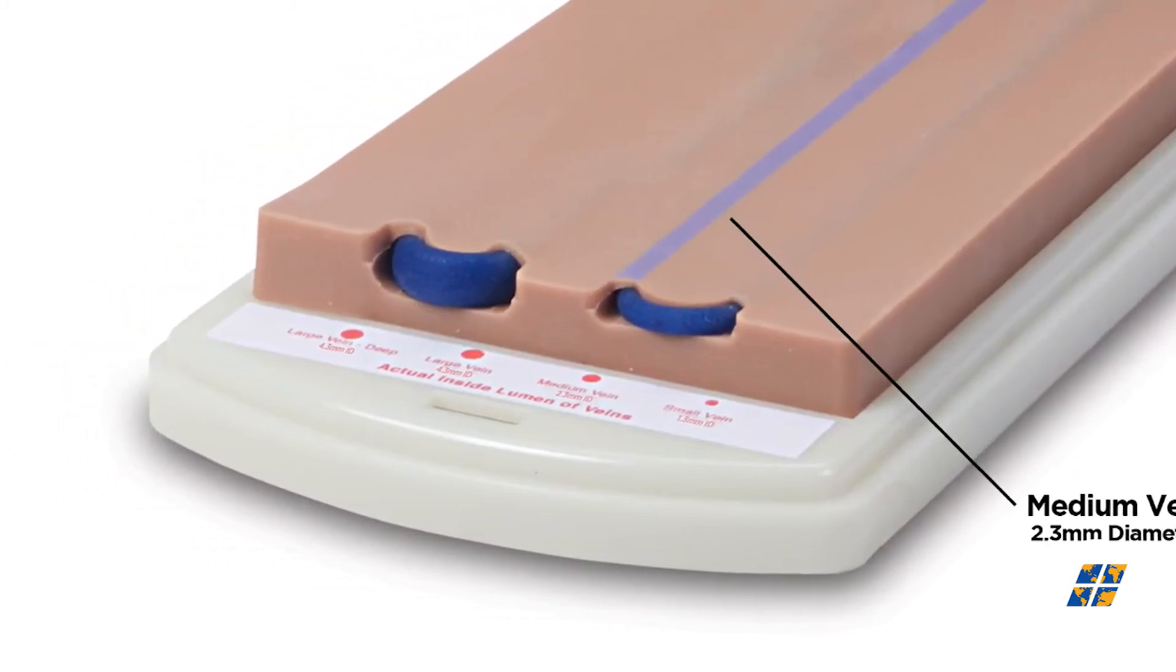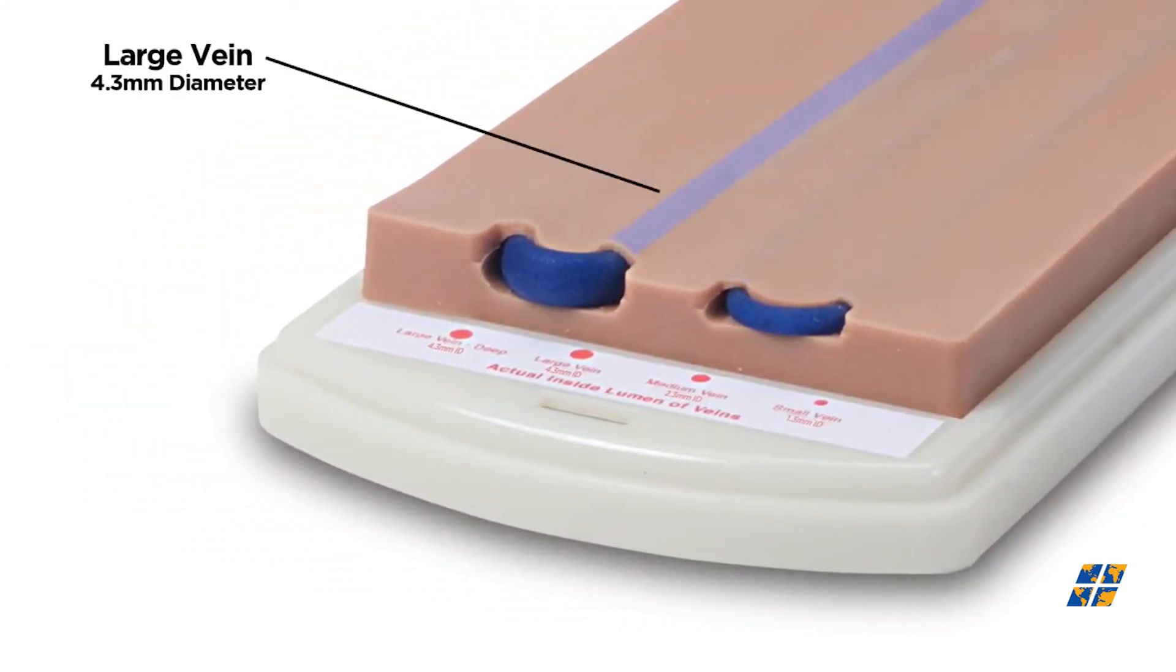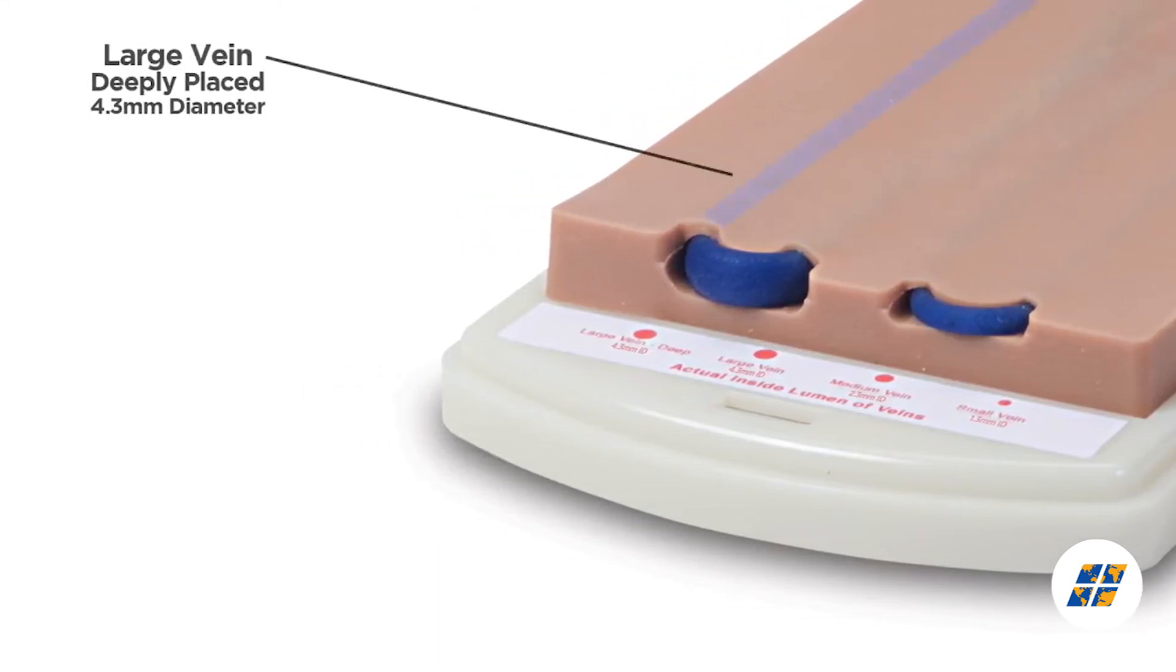The 2365 Advanced Venopuncture Training Aid was specifically designed to make accessing more challenging, as this is how technique is improved.